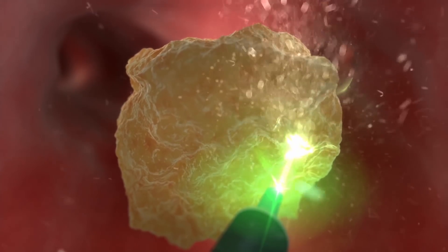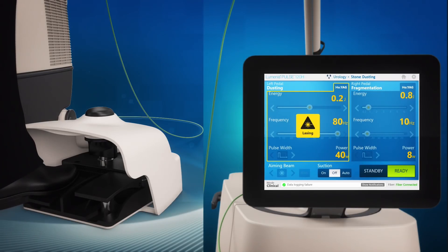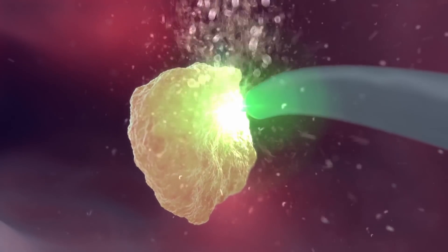The system has two pedals allowing the use of two different laser settings, such as lithotripsy on one and dusting on the other.